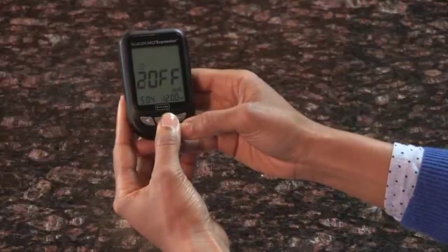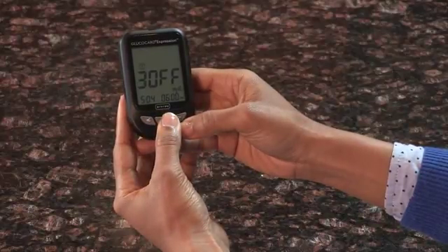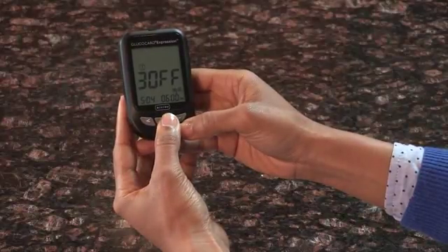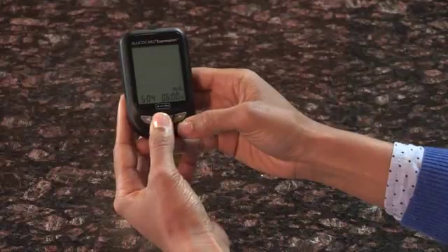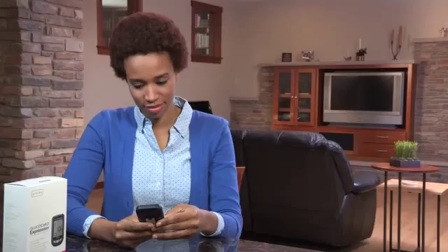Repeat the same process used to set Alarm 1 for Alarm 2 and 3. Once you are finished setting up Alarm 3, press Enter to exit the alarm setup. To set the volume on your GlucoCard Expression, press the Enter button to enter Setup Mode.